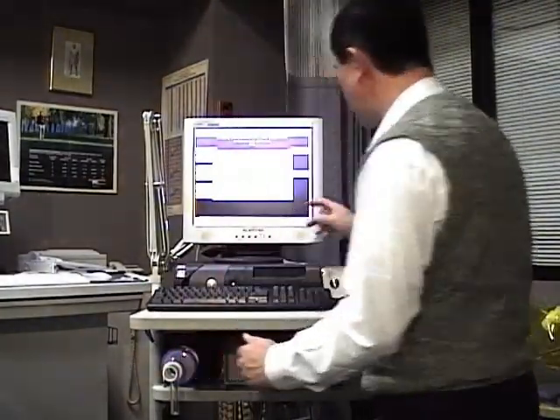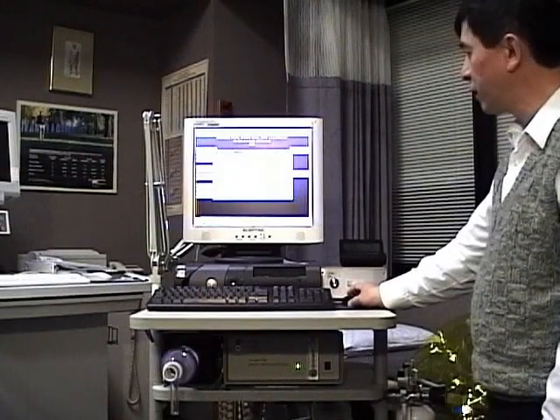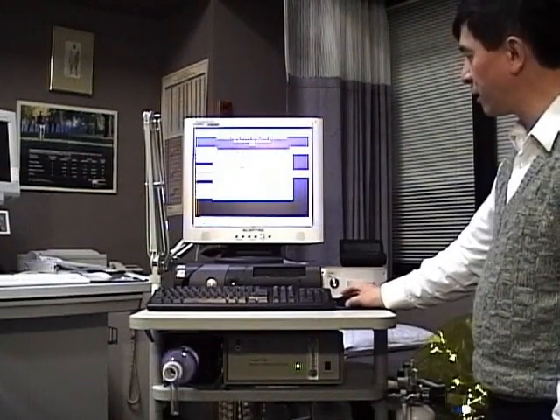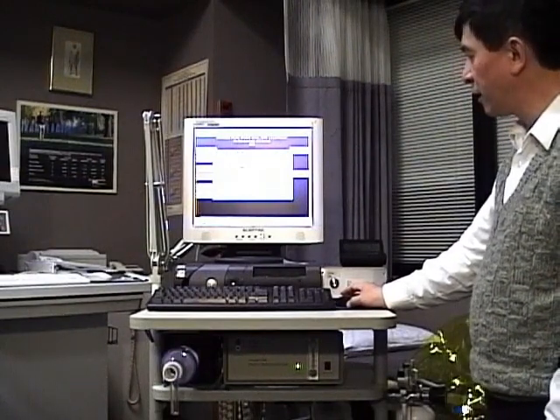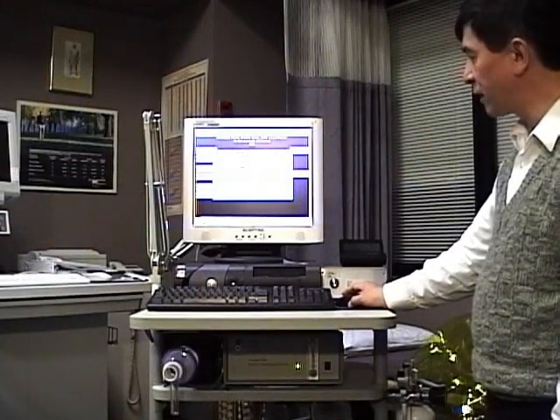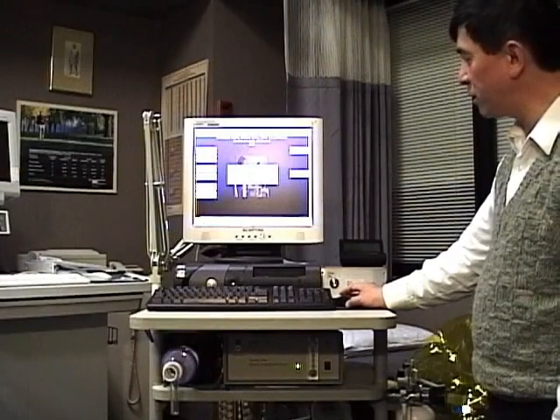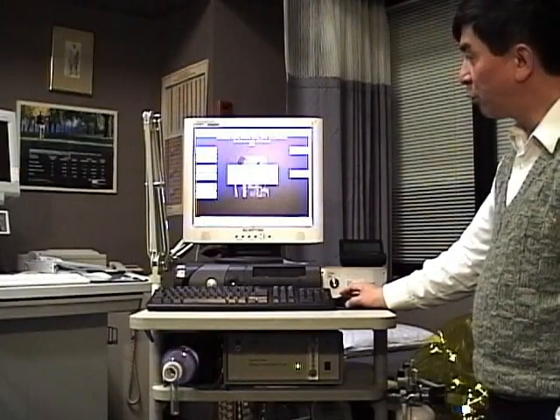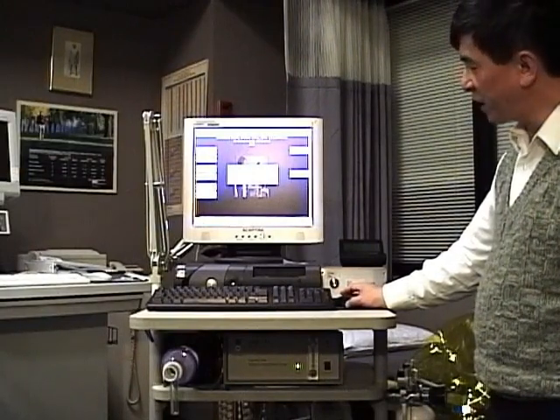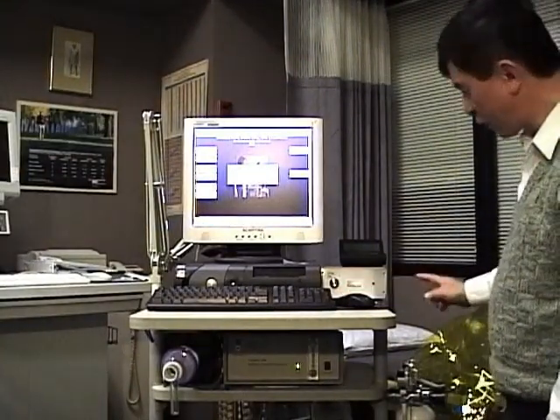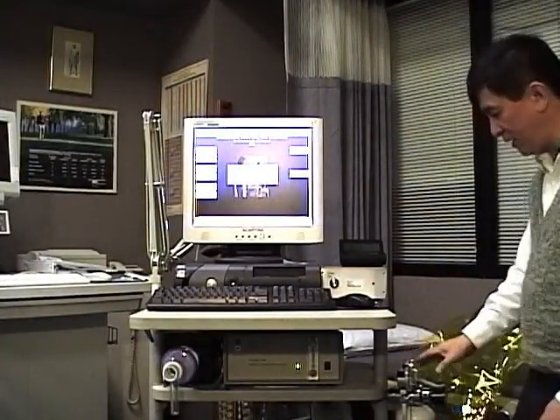And the CO2 is 0.99. We click OK, we verify the cal gas has changed to new number, prompt us to turn on the cal gas to 3 psi.